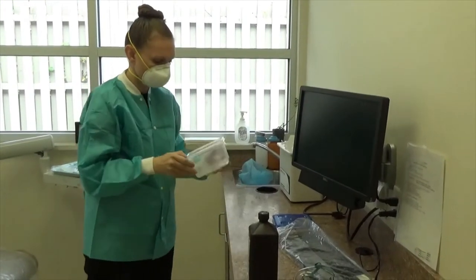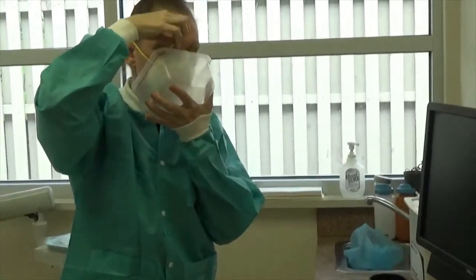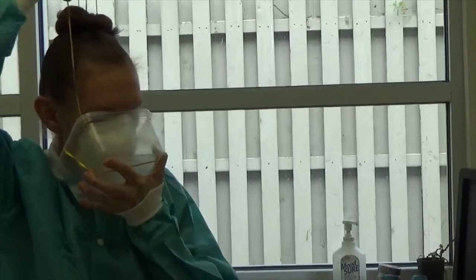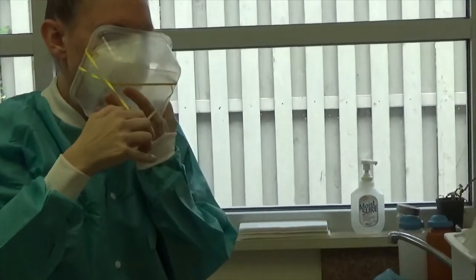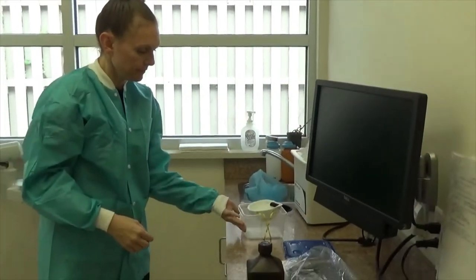You're going to take your container, take the one strap, wrap it around the container, then you're going to take the other strap and wrap it around the container. This way you're not touching the mask — it is now easy to remove. You leave that on the counter.